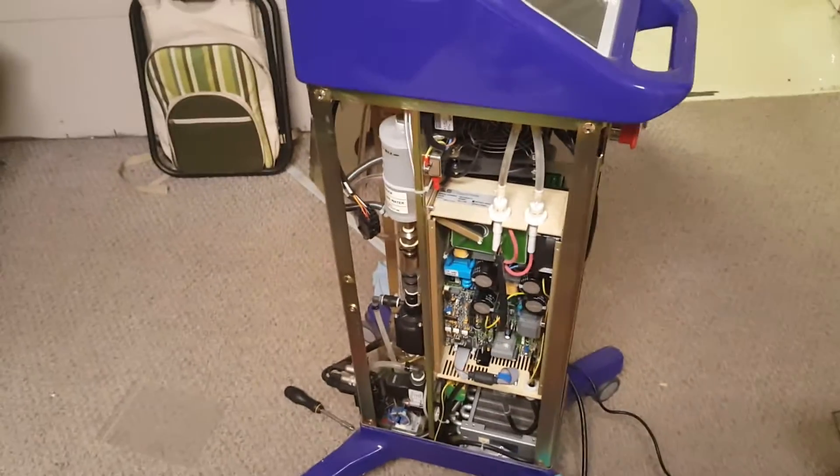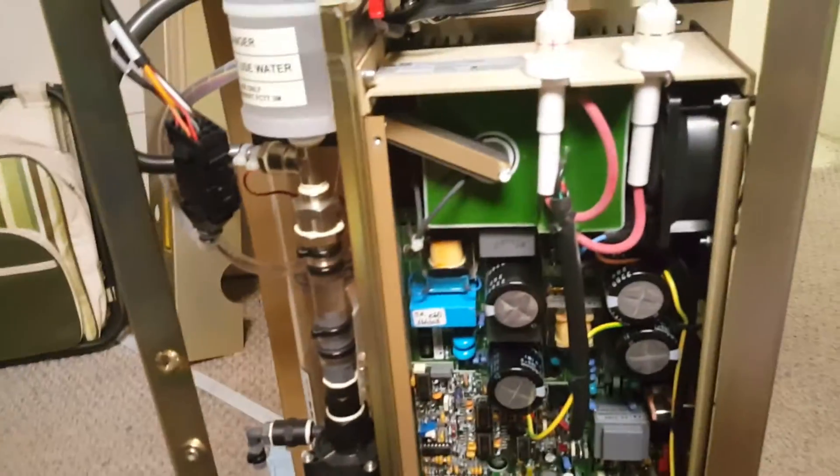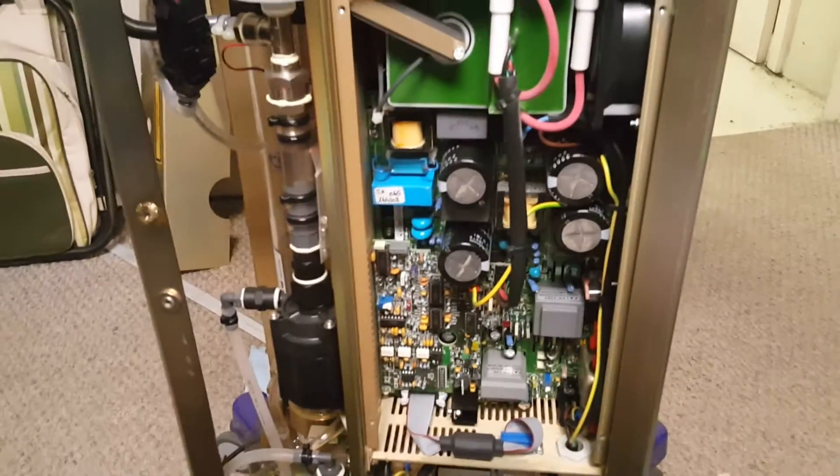Today I'm working on a surgical laser machine that doesn't work. I was doing some troubleshooting and I'm going to give you a quick once-over. I have a question for those who know things about lasers.